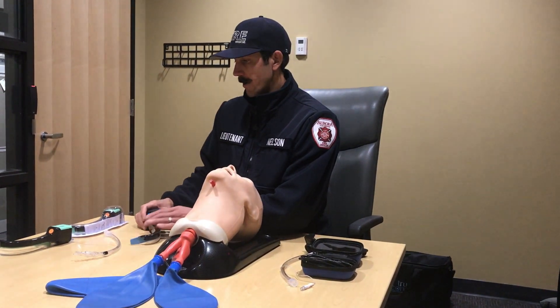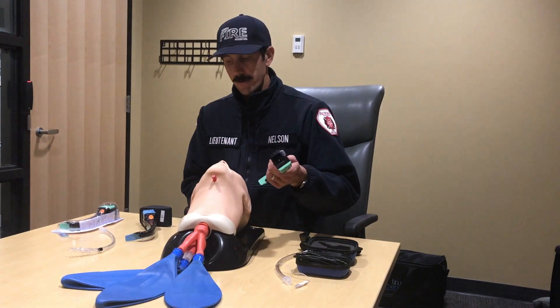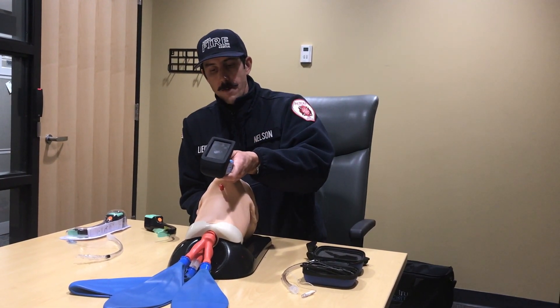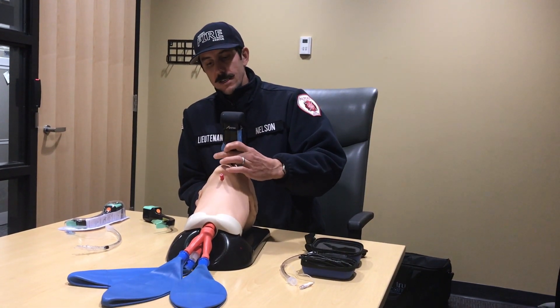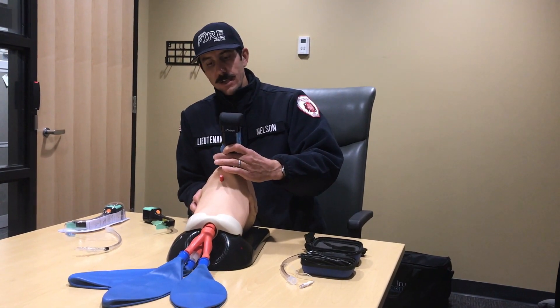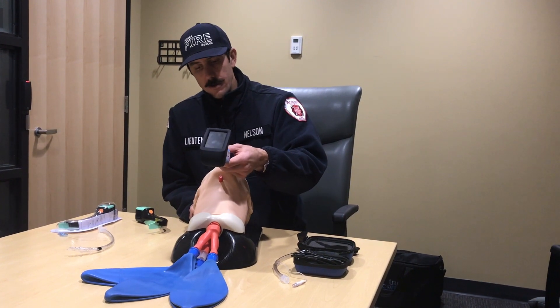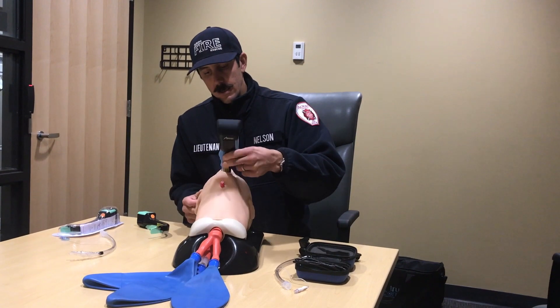The next common problem is the tendency to go too deep with the blade. With a traditional laryngoscope, you might go deeper and work your way back. It's very easy to go too deep with this device and end up past the airway structures you need to intubate through — you can end up in the esophagus just by approaching at too steep an angle. They strongly recommend starting with a shallow angle, using that two-finger shot glass technique to conduct your intubation.